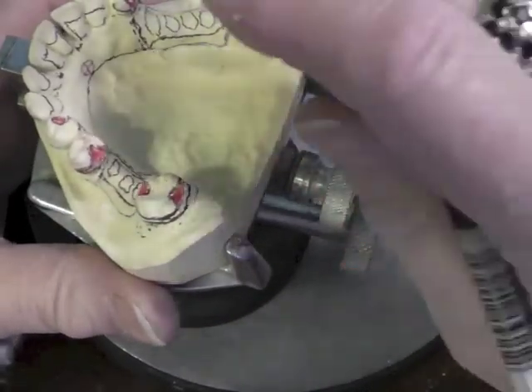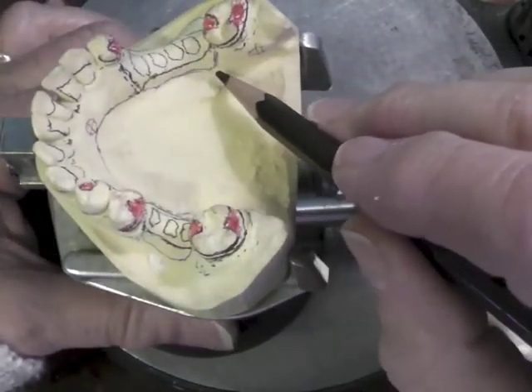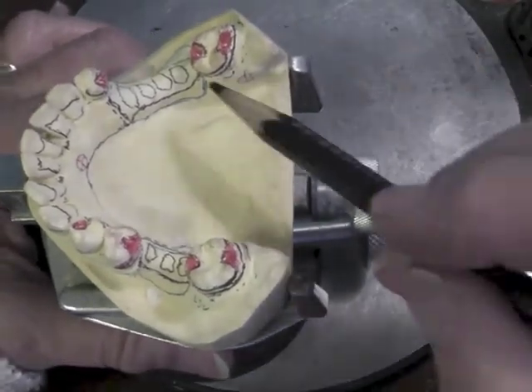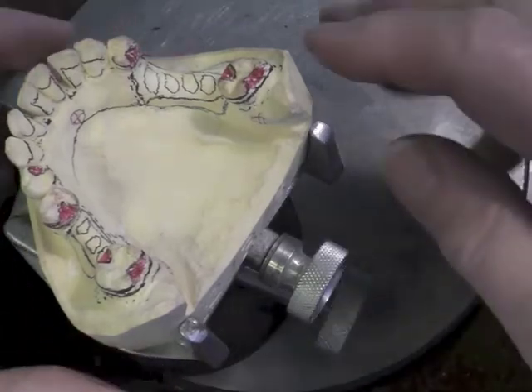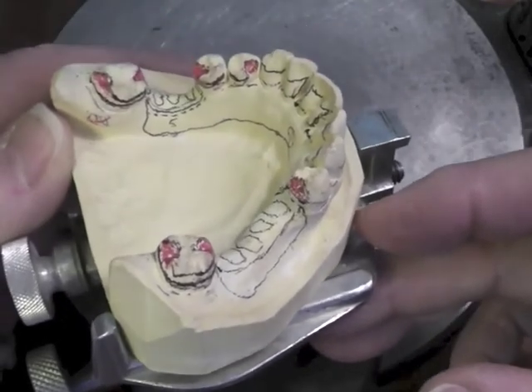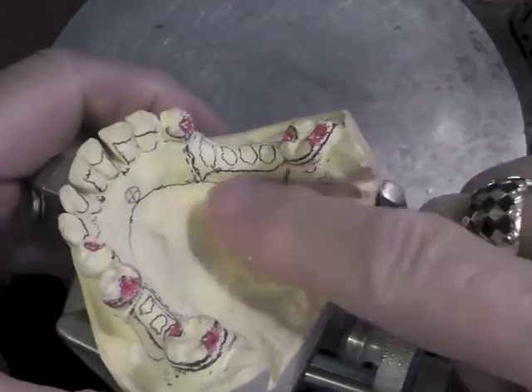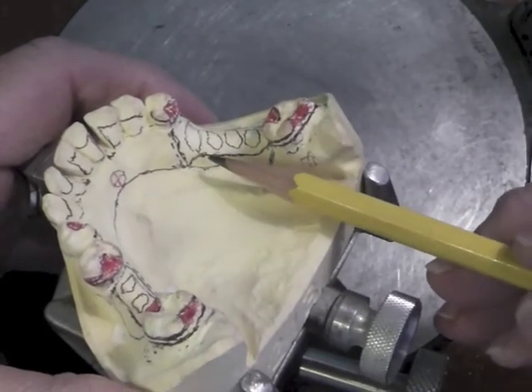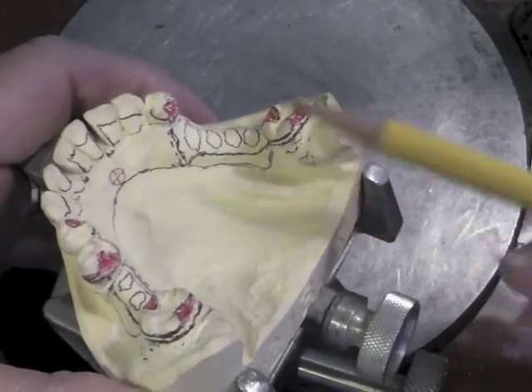This is how we would draw it if we're planning for the loss of that tooth. When that tooth is lost, we have base attachment right here, and we can just bring our acrylic, cover the retromolar pad, and finish off that partial denture and add the tooth that's going to be lost. You can see how this is different from the side where the major connector extends backward. When the tooth is going to be lost, we do base attachment. This will be bulkier in this area because there will be space for the base attachment, there will be the base attachment, and there will be acrylic on top of it. That's one of the disadvantages — it's bulkier on the lingual toward the tongue than if it's solid metal part of the major connector.